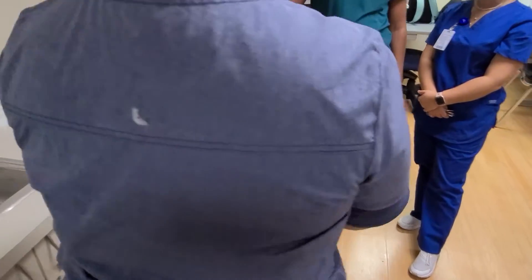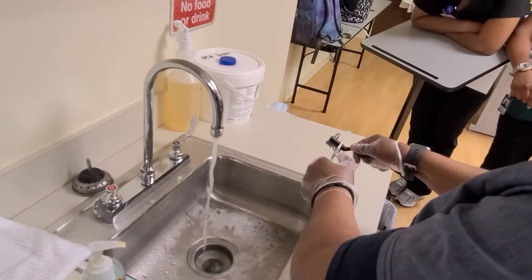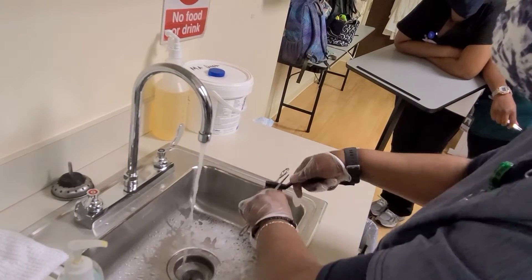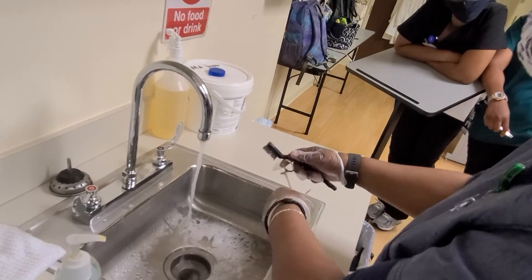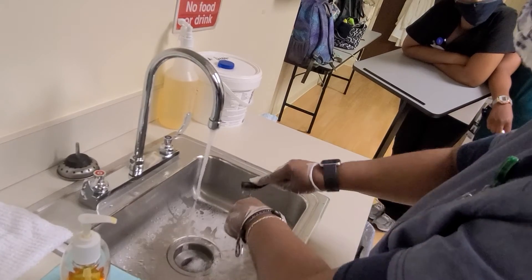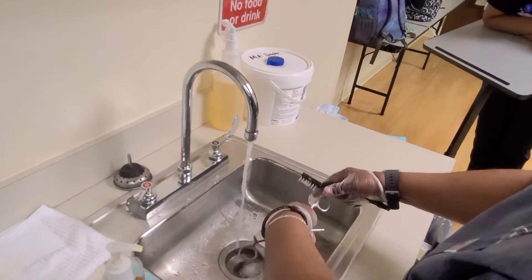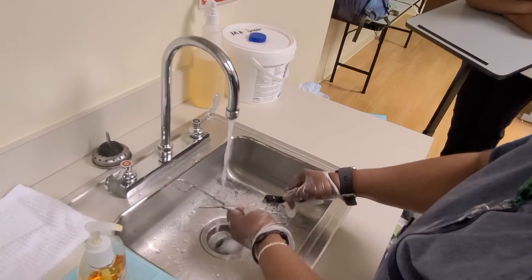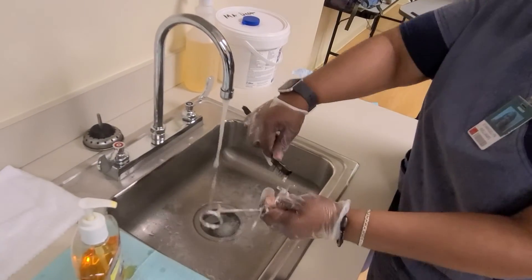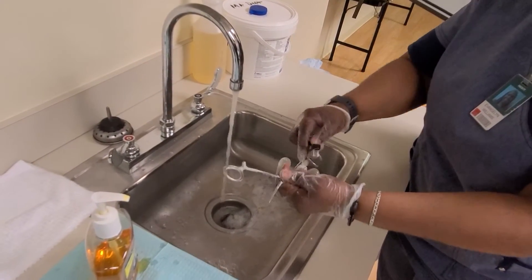What you'll see is blood coming through. So that's how you know things get in the crevice and you can't see it — that means you have to address every part. Some people have asked me, do I wear PPE? There's nothing wrong with that, especially because this is splashing, so I need to have goggles on. There's nothing wrong with wearing PPE. So again, same direction of the serration and then the opposite direction. I need to get the other side — same direction of the serration, then the opposite way. Now I have addressed everything.